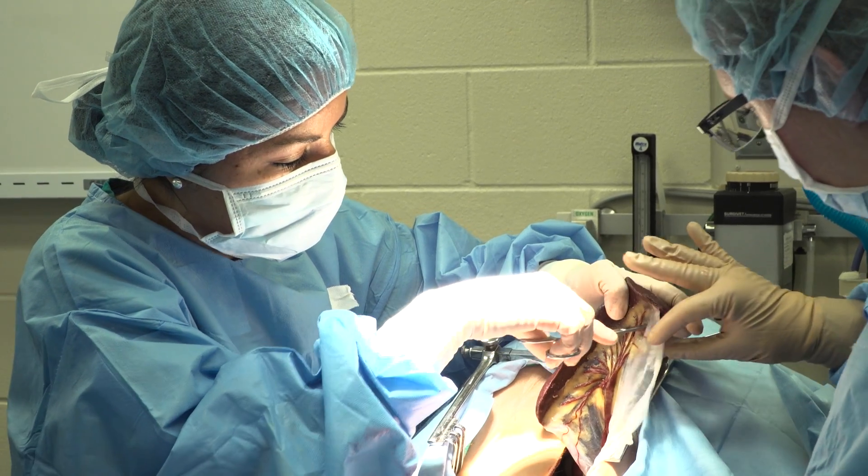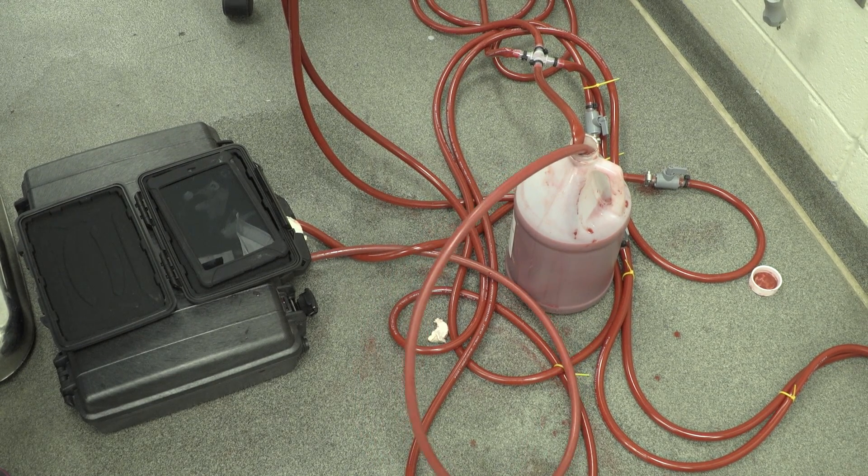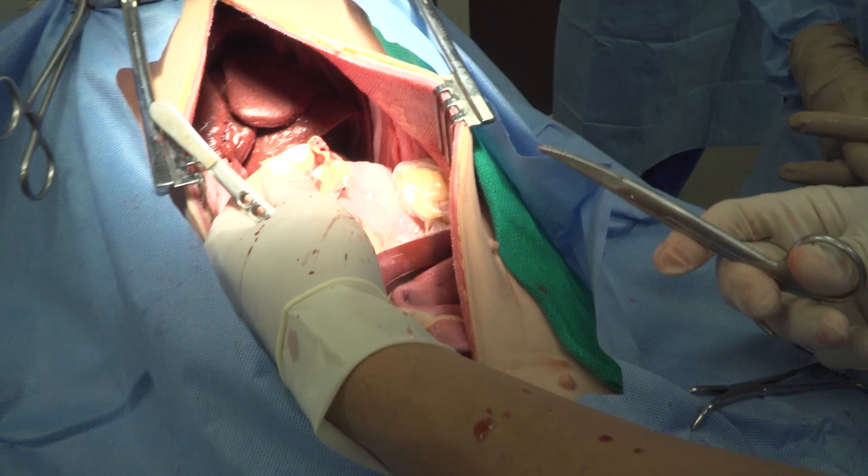These are amazing models. Most of the organs that we're doing surgery on are vascularized, so they've got a pump and this synthetic red fluid that looks like blood. We can change the heart rate and blood pressure, so we can mimic a hypotensive or hypovolemic episode.